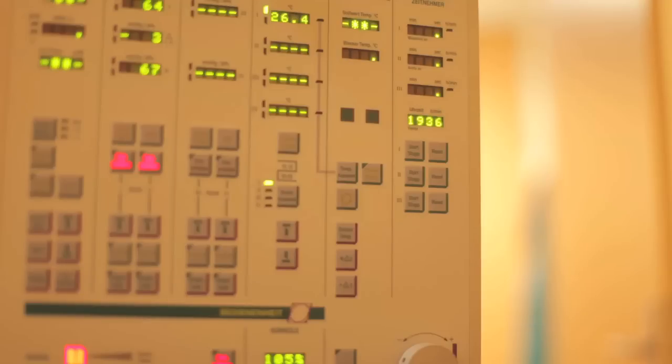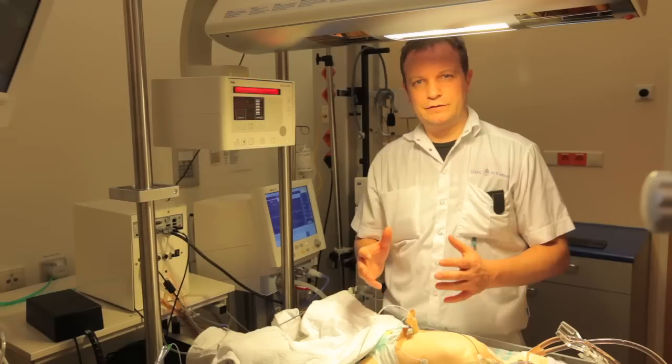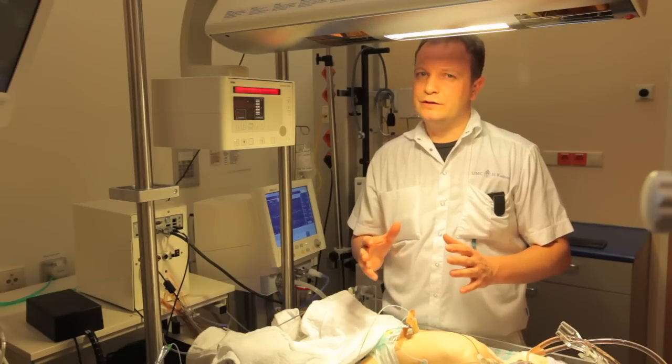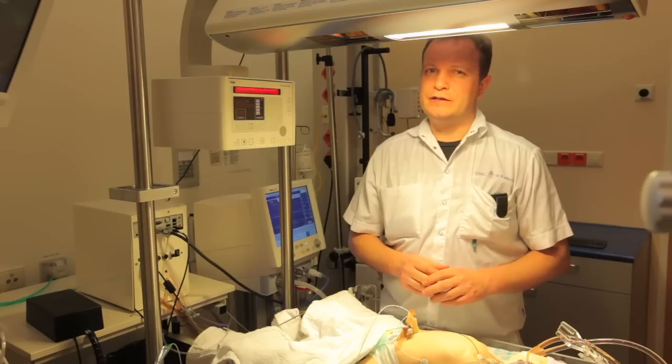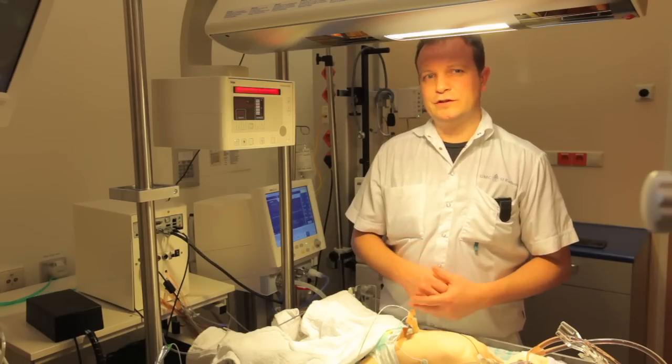We can use it in skill training and in the big simulation sessions we do. With this simulator, we completed our ECMO simulation program. We have step one with e-learning and lectures for theoretical knowledge gathering, step two for skill training, and step three for integrating all those skills and theoretical knowledge into a real-life scenario. I think we have completed a really good simulation program, and it's one of the reasons why we got our center of excellence twice.